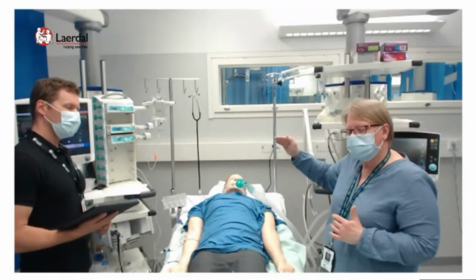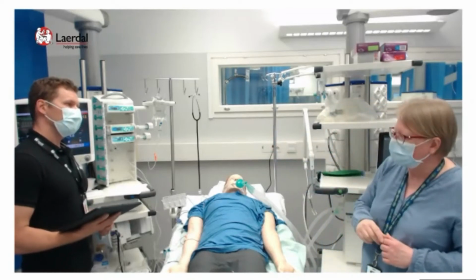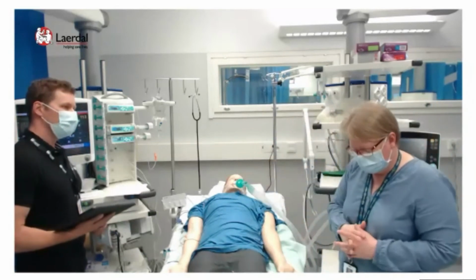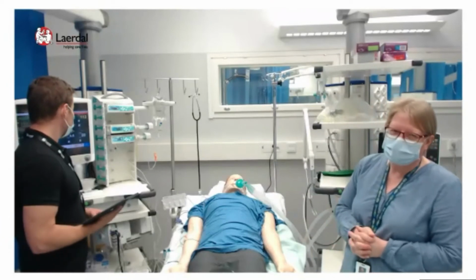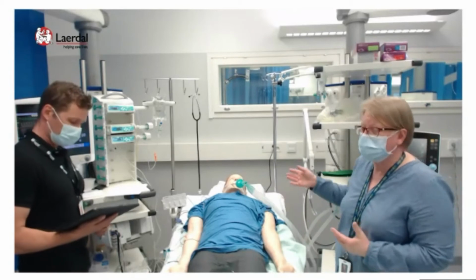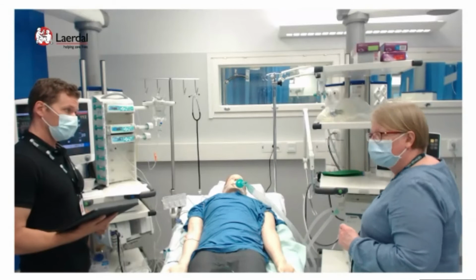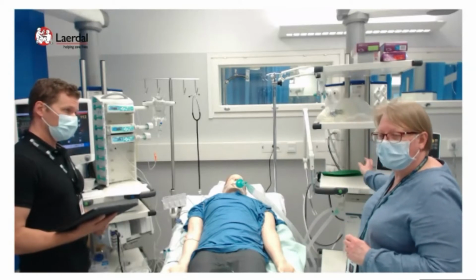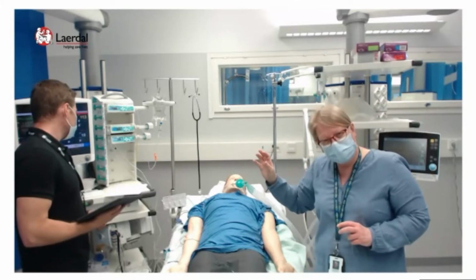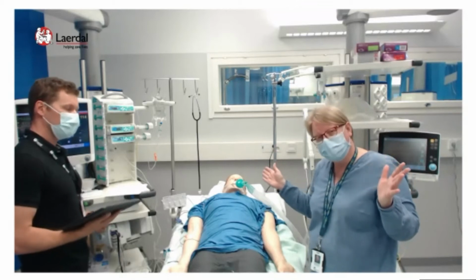There is a high plateau pressure, high peak pressure, and the oxygenation is still lagging around 80, 81. Not looking very nice. We can still raise the fraction of inspired oxygen. It is only 80 now, and you can think about raising it to 100%, but then that's it, you can't give any more.